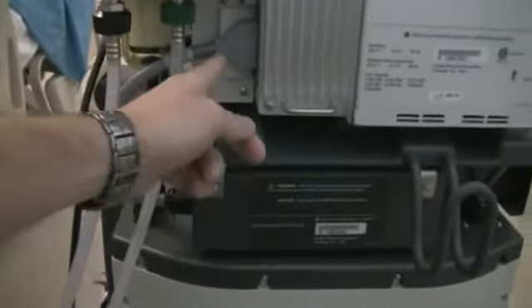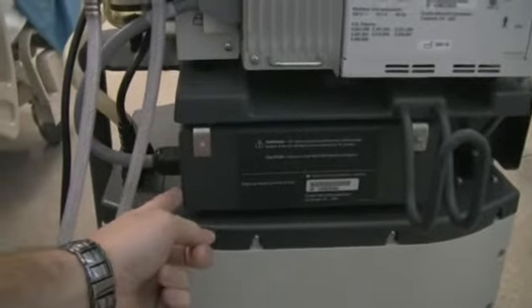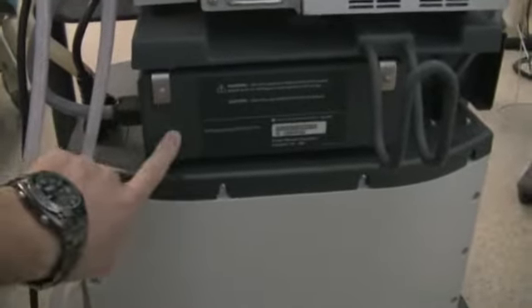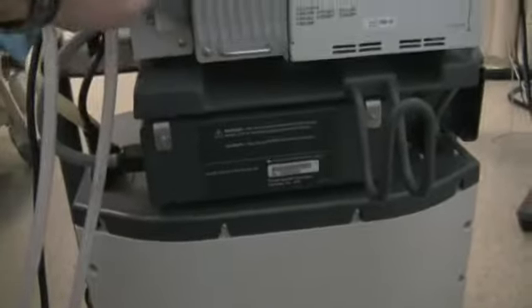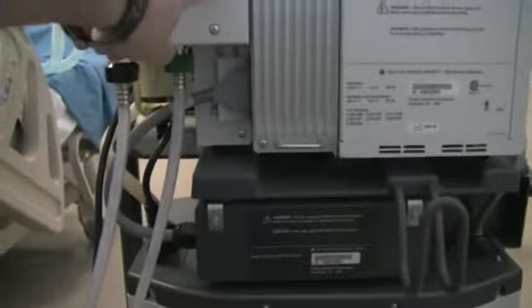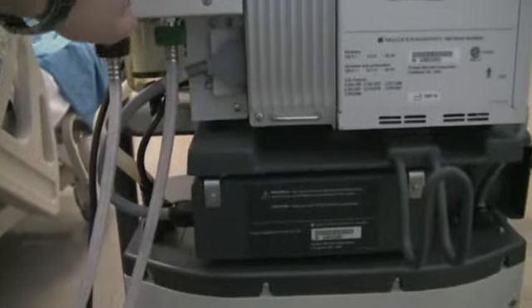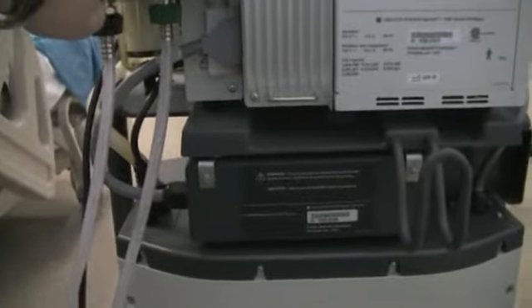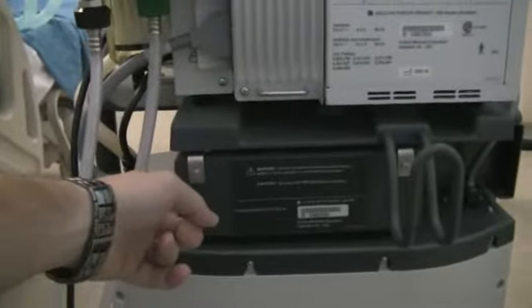This is our cable that actually runs to the backup battery. So if we should lose power, this will actually power the machine for a certain amount of time, probably long enough to make sure and get the ventilator switched out. But you wouldn't want to run off of this for any extended amount of time.